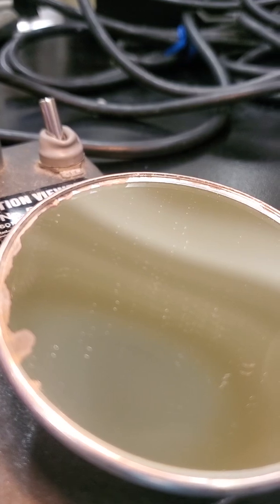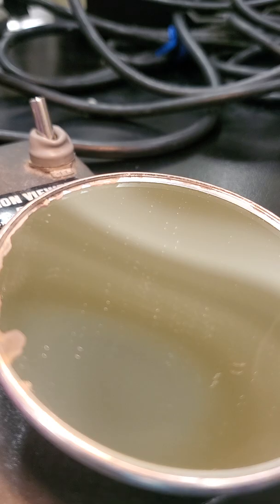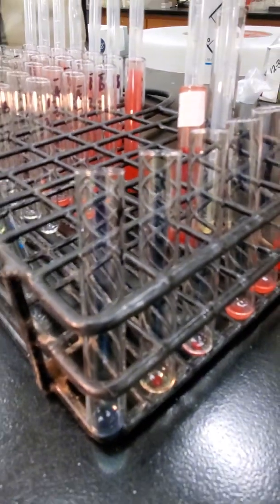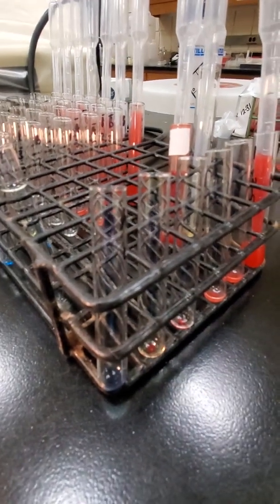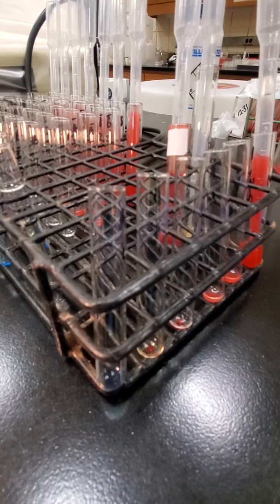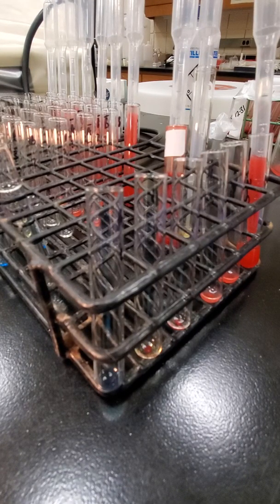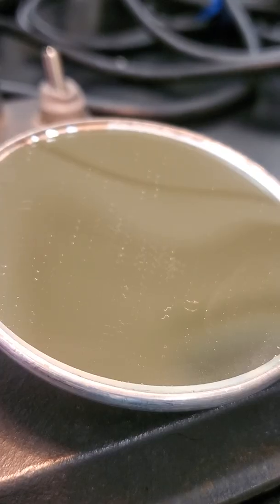So I'm just going to pause the video just for time savings. I'm going to go ahead and aliquot out all the rest of the unknowns. We've got 8 total, so I'm going to do that real quickly. And then I'm going to rock the buttons in the mirror, and I want you guys to record the reactions that you're seeing and then interpret those. So I will be right back.